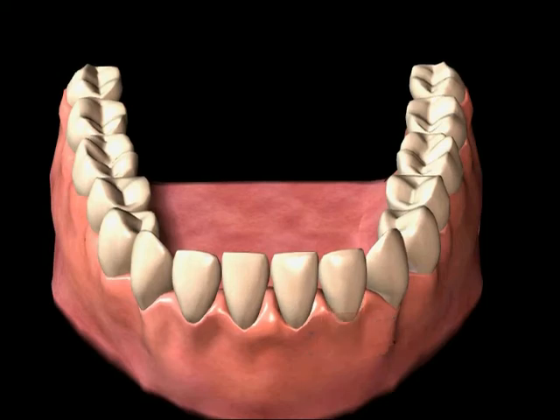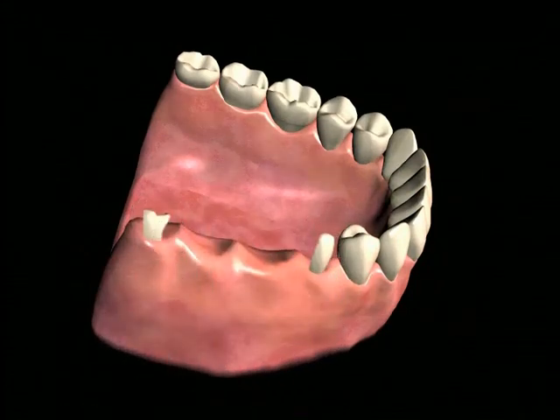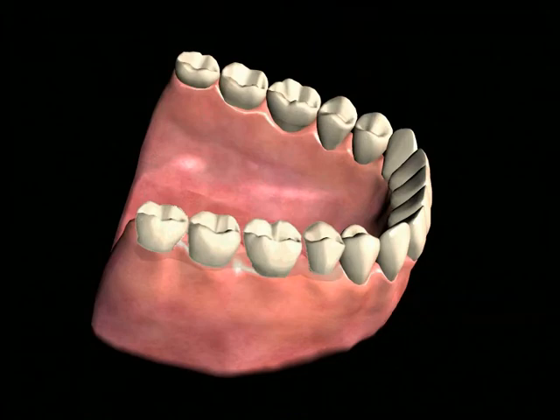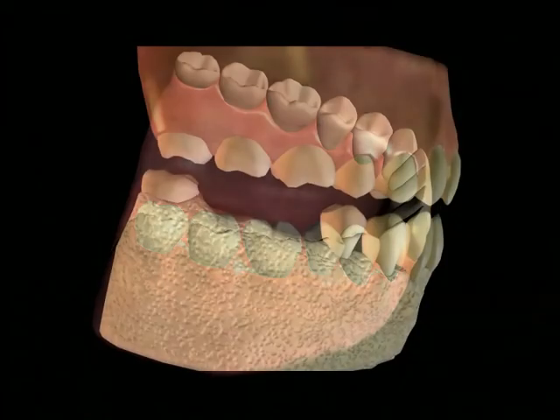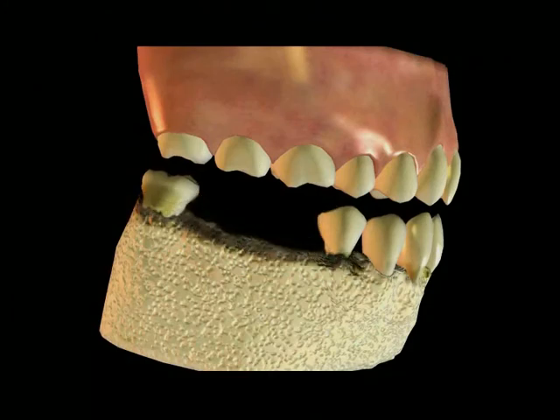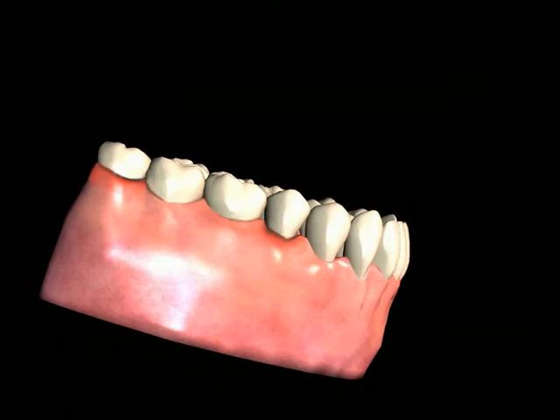The drawbacks for this type of prosthesis are mainly that the neighboring teeth have to be ground down in order to have this type of bridge fitted, and crowns or caps have to be made for the teeth adjacent to the space with missing teeth. The bone and tissue in the area of the missing teeth can continue to be lost since there is no direct stimulation to the bone. Additionally, this type of bridge can be prone to decay in the anchoring teeth, which can compromise the long-term prognosis for the bridge.